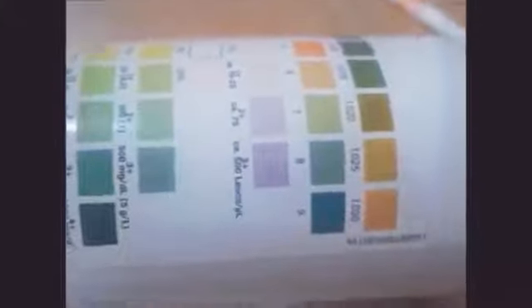You can have a closer view of this box. First of all is the specific gravity. The first line tells you about the specific gravity. You can see the different values. The second is the pH. Next is the leukocyte count. And this way, the whole of it: the first one is the specific gravity, and you can see the different values of it. The second is the pH. Third one is the leukocyte. Then the nitrites. Then the protein. You can see the different values.